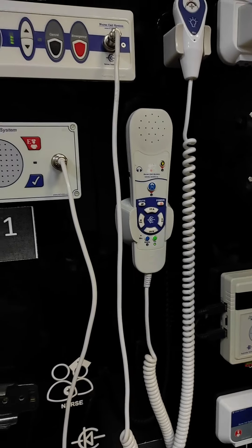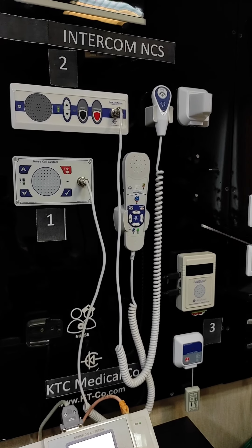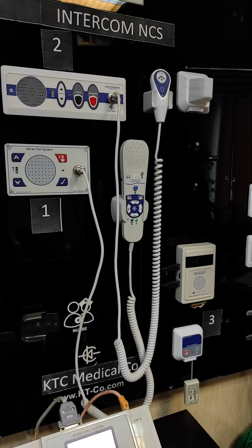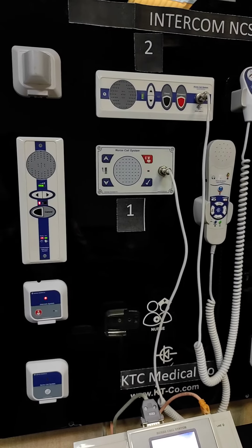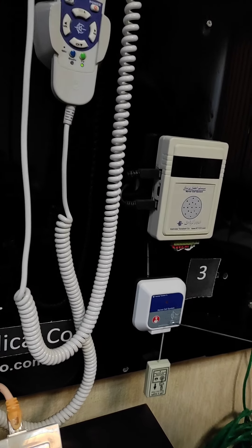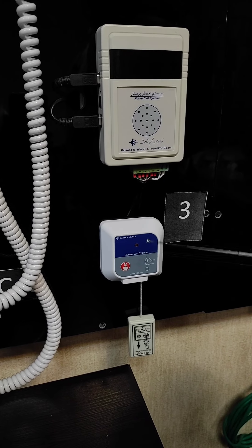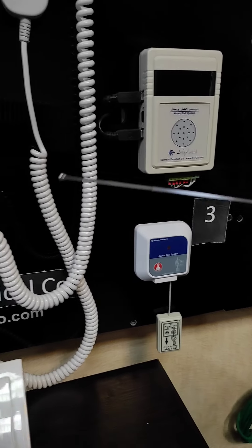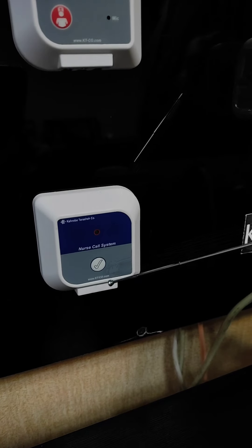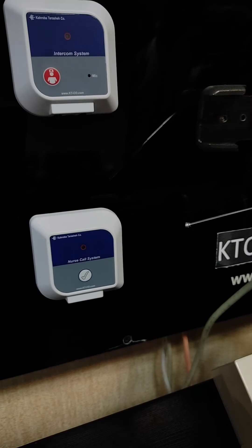So those are the elements of the patient's console. Then we go to the corridor and washroom elements. We have the overhead corridor status lights, as you see here and here. We also have the pull cord switch that is installed in the shower or washroom — by pulling this cord, the nurse call is initiated. And then we have a separate cancel or presence panel that the nurse should come and personally press, installed next to the door of the washroom or shower room.